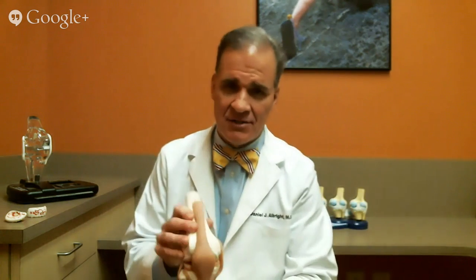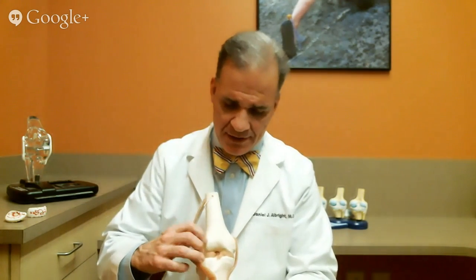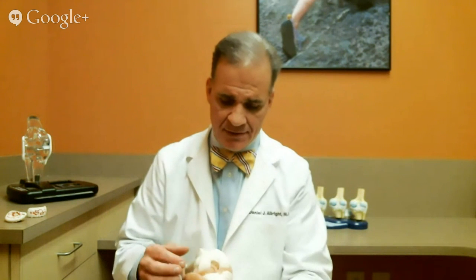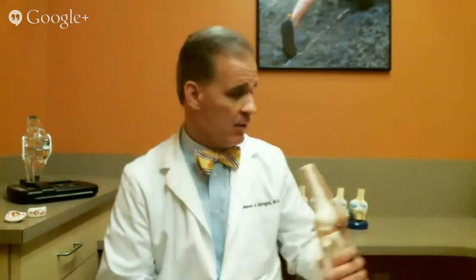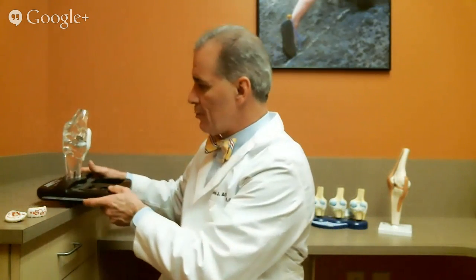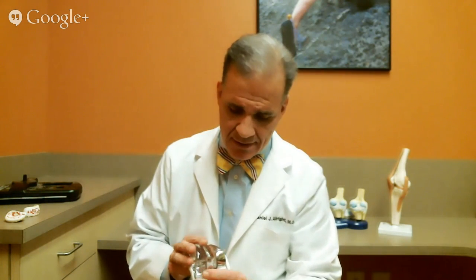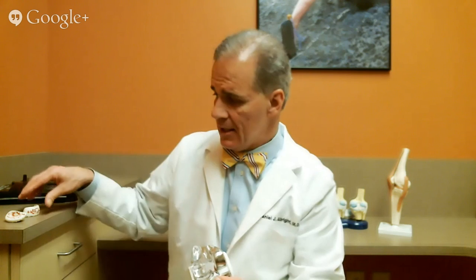Let me show you a model. The knee is a hinge joint and it's pretty easy to expose in surgery. A lot of people who may be getting knee replacements have a good knee on the outside and a good kneecap — it's only the inside that's worn out. I've got a model of a partial knee replacement called the Oxford knee. I have a real preference for this knee. Its design is from Oxford, England and it has 20-year success rates.